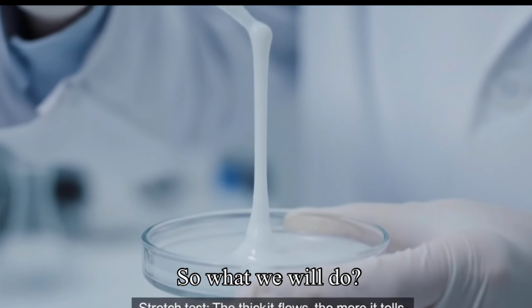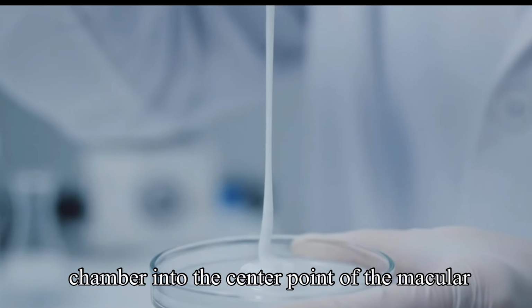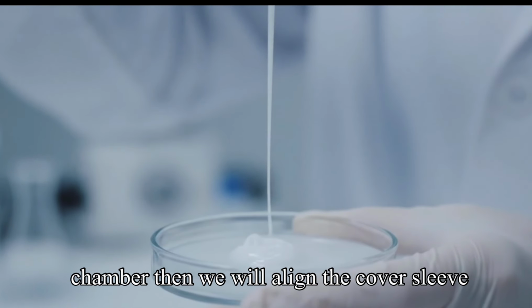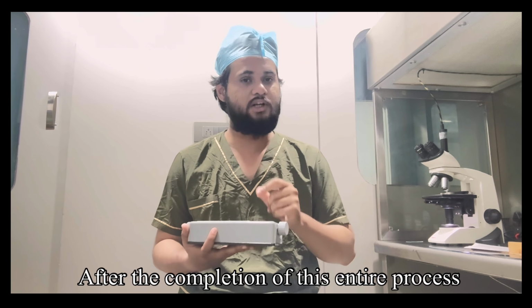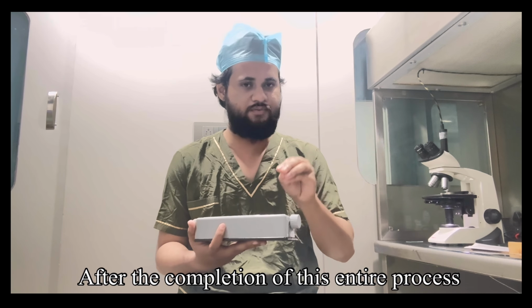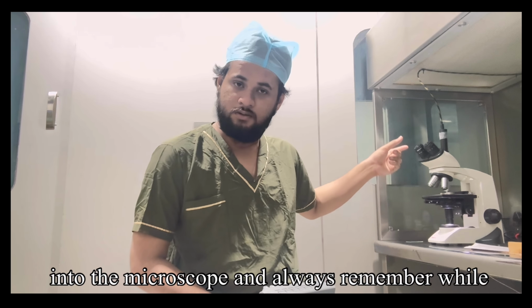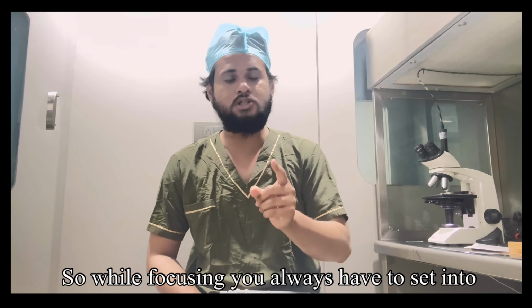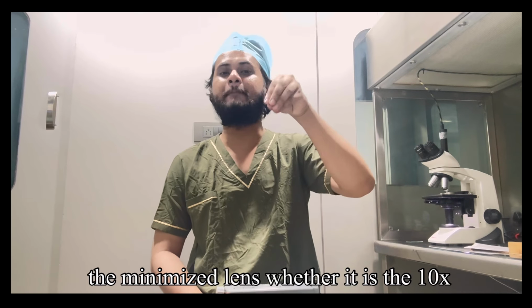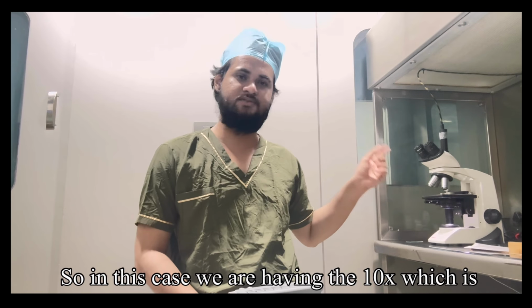So what we will do is pour the 10 microliter sample into the center point of the Makler chamber. Then we align the cover slip in such a way that the two dots are parallel, which we have already discussed. After completing this entire process, we put the Makler chamber into the microscope, and always remember while focusing, because focus is very crucial in embryology and andrology both. While focusing you always have to set the minimized lens, whether it's the 10x or the 20x. In this case we have the 10x, which is the minimized lens.